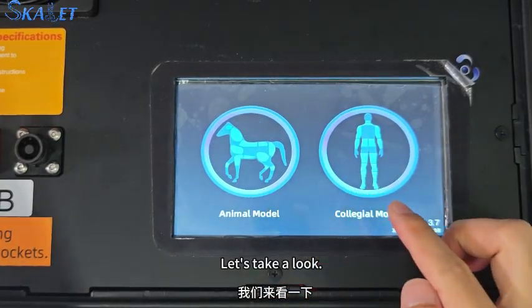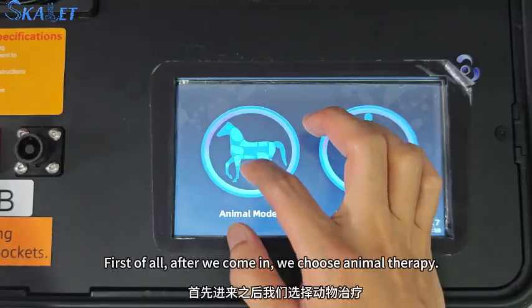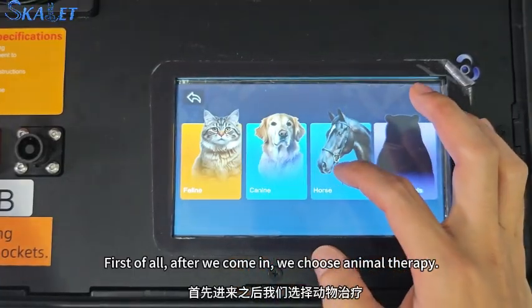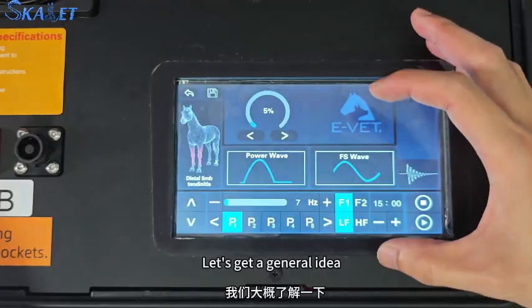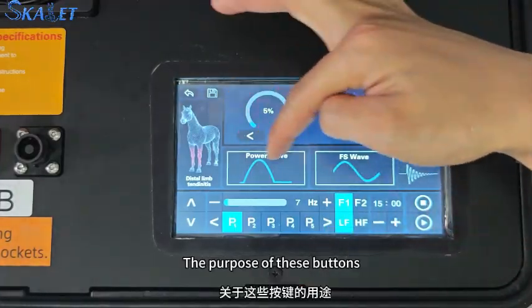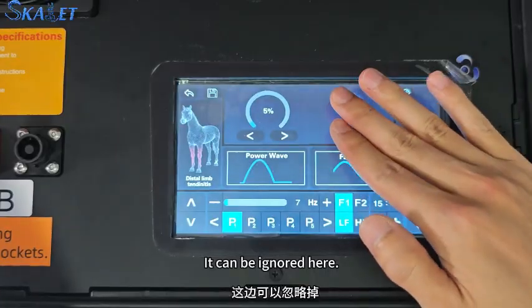Let's take a look. It's a prescription for animal therapy. First of all, after we come in, we choose animal therapy, then choose the treatment of the horse. After entering, let's get a general idea of the purpose of these buttons. Here's the intensity of the energy. It can be ignored here.